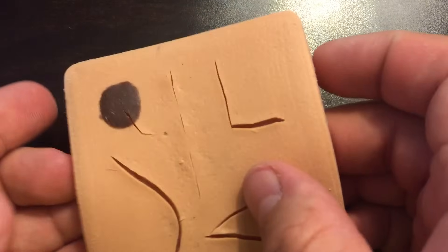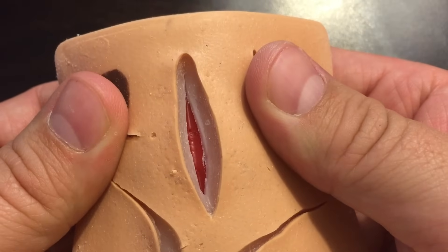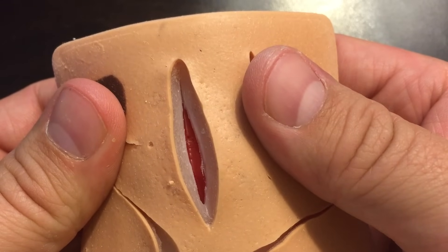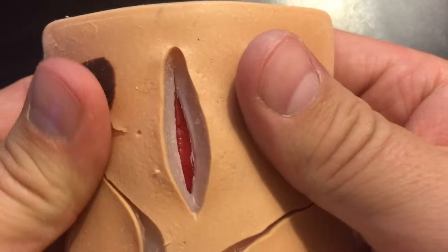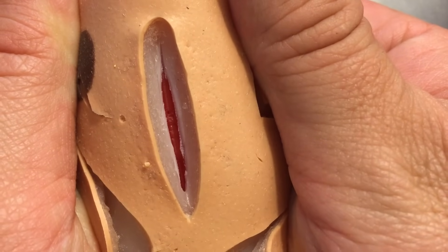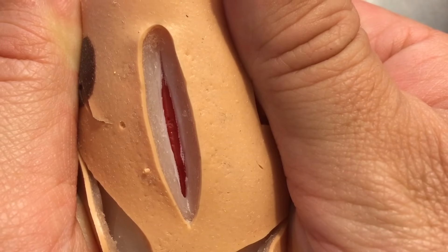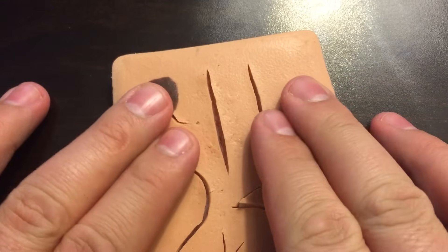If your laceration is on an arm or a leg and it's big and gaping, you first need to assess how deep it is — do you need some deeper absorbable sutures? If you still need to close a gaping laceration, you might need to go with a vertical mattress suture or a horizontal mattress suture, at least to start it off.